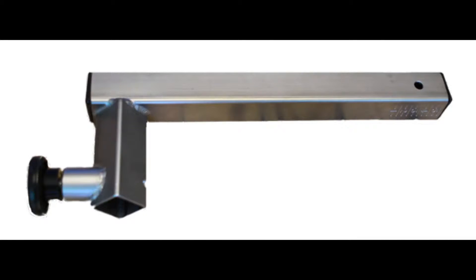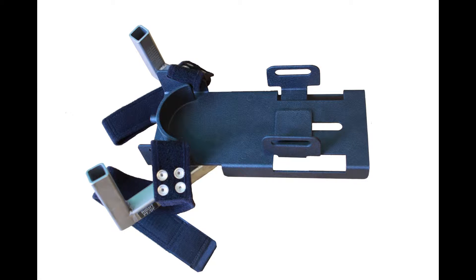Collect the adapters and stabilizers for this position. For internal and external rotation we will need the ankle adapter and the foot plate. These are often left attached to one another.